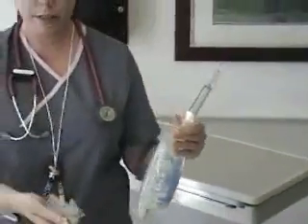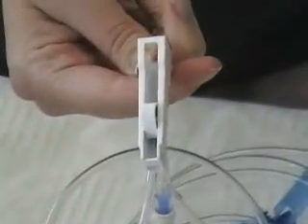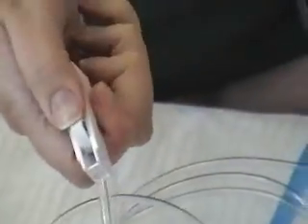On the tubing there is a clamp right here. You can roll it forward to lock your tubing and then nothing is going to come through. Here's the clamp — it's in the closed mode right now. I can roll it forward towards me and then it's open, and then you can move it along the tube and you know it's open.